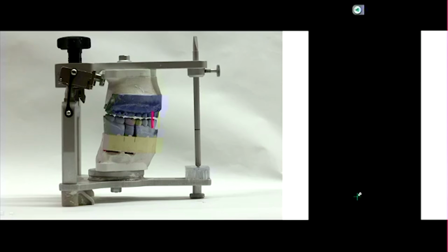You guys with me? Okay. So based on this, we haven't changed the vertical dimension of occlusion, right? Because the distance between the jaws is still the same. Okay. So let's move on, and let's just say, hypothetically, and we can pick any reason we want, let's say we want to, in this stage, increase the patient's vertical dimension of occlusion. So what that means is we want to make the crowns a little taller than what they used to be before they were prepped. Okay?